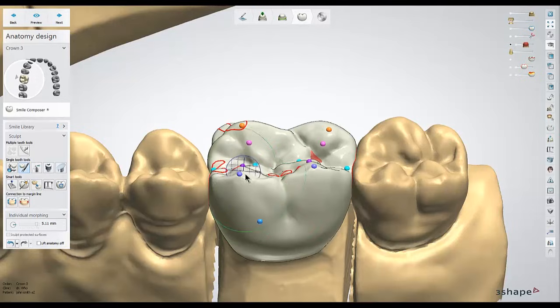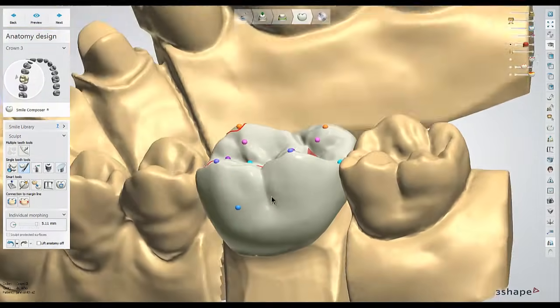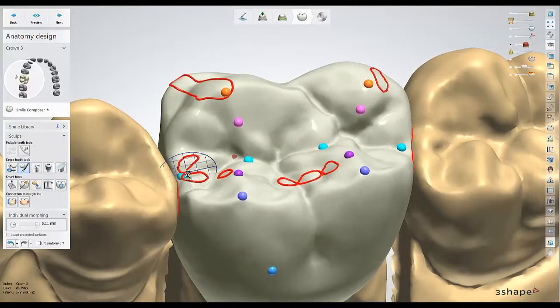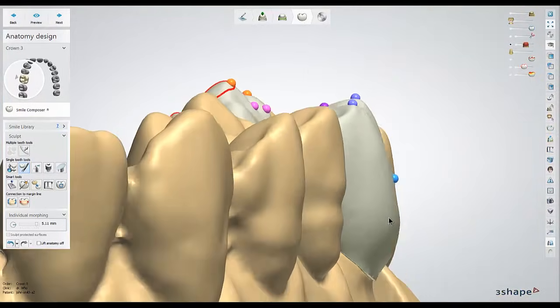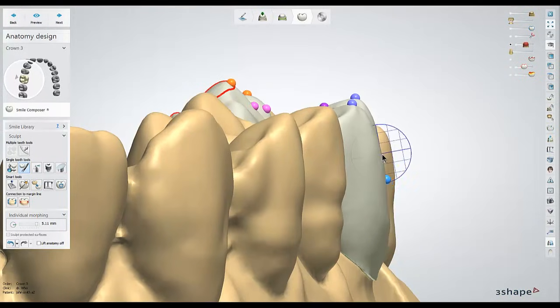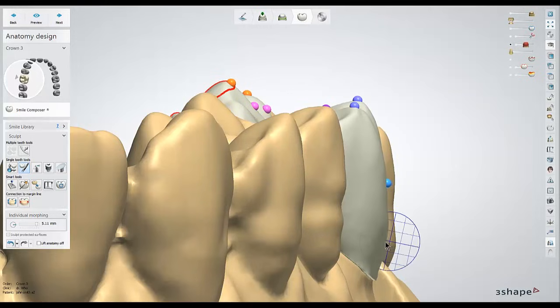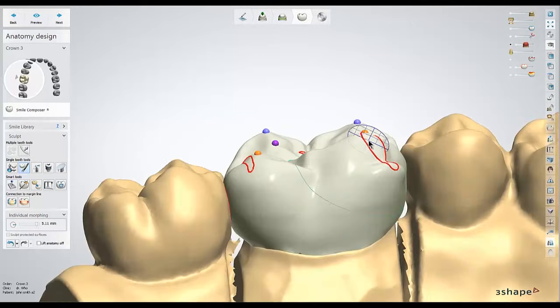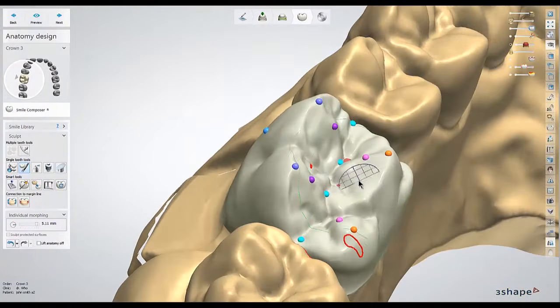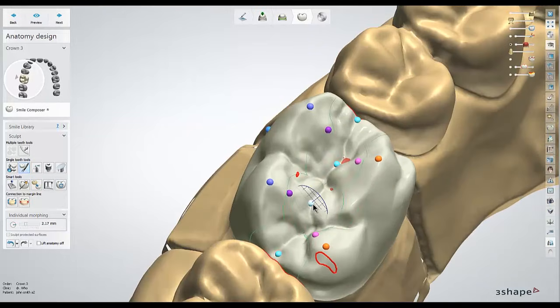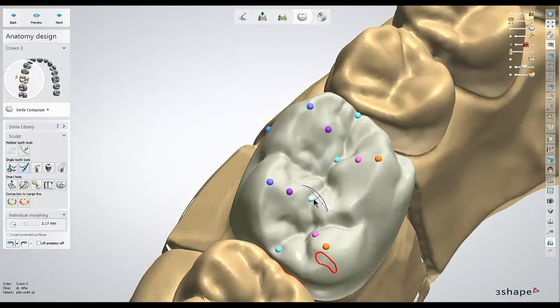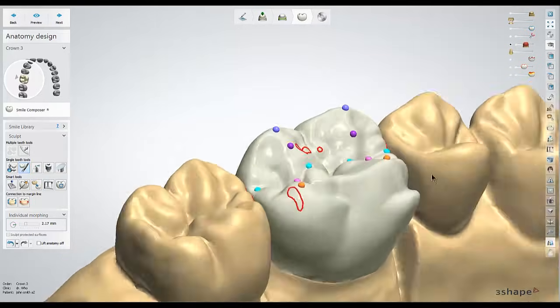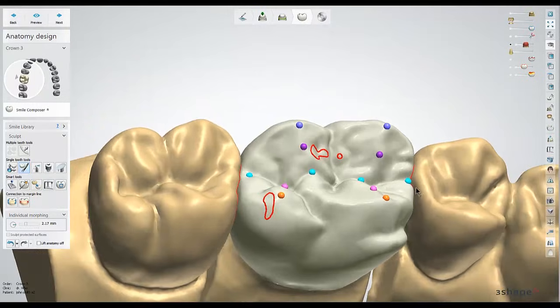The next tool I'm going to use is the tweezer icon, or the morphing tool. With this tool you can simply grab different parts of the anatomy and move them around — like raising these marginal ridges, adjusting the cusps, or adjusting the profile of the unit by grabbing the bold edges, and make big changes to different sections of the anatomy. I'll typically use a very large circle size so I don't have a likely chance of distorting the anatomy. You can also hold down the shift key to move multiple points at once — for example, grab these cyan dots and hold down shift to move all of the occlusal pits at once.